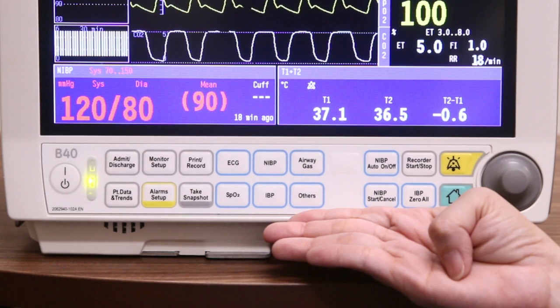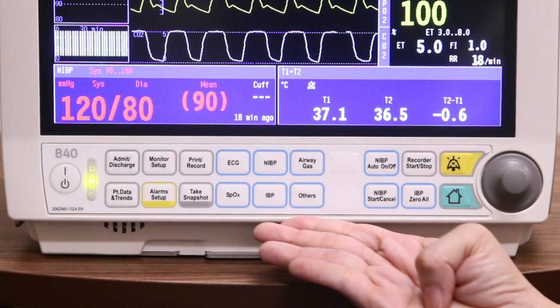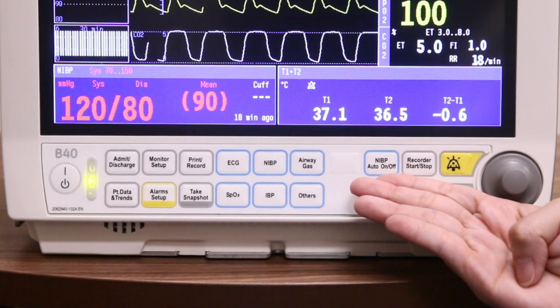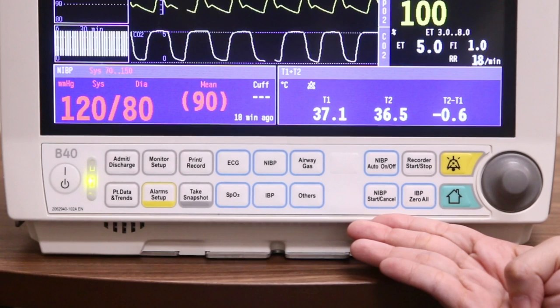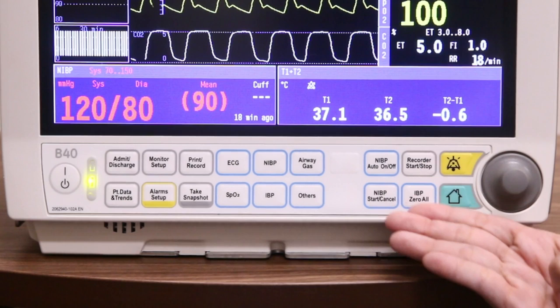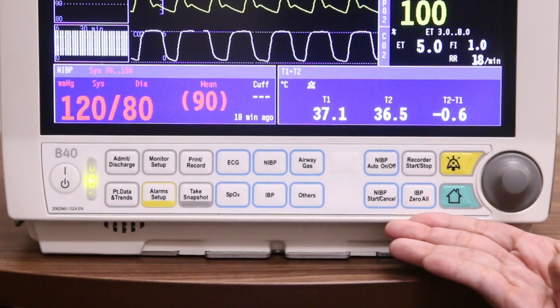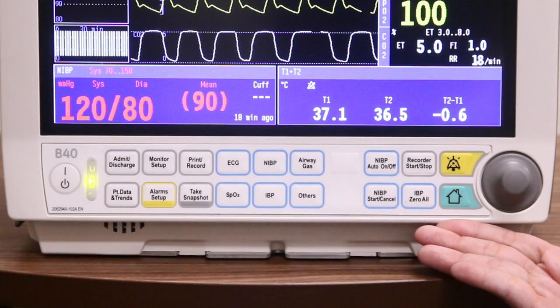Next, you will see parameter-specific menus such as ECG, NIBP, airway gases, SPO2, IBP, as well as other parameters. NIBP auto on or off is for starting or stopping the NIBP automatic cycling. NIBP start or cancel is for starting or stopping the NIBP manual determination. Recorder start or stop is for starting or stopping local recording. IBP zero all is for zeroing the invasive pressure channels. Silent alarm is for silencing the alarms. And lastly, home screen to navigate back to the normal screen.